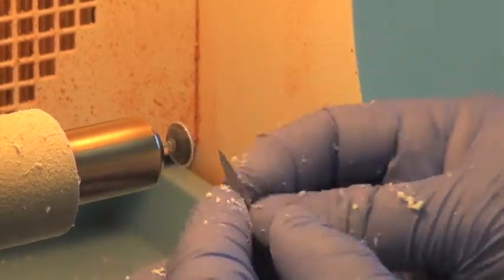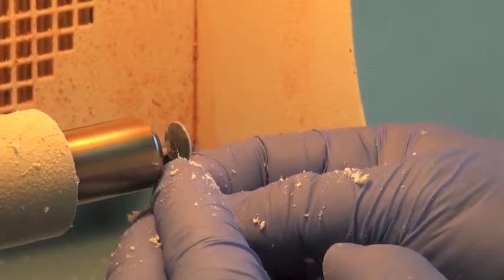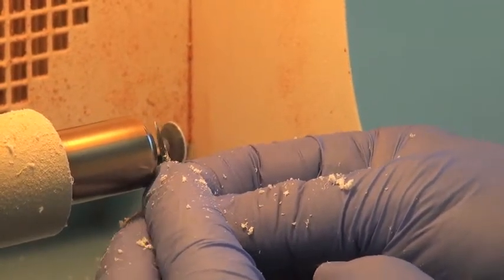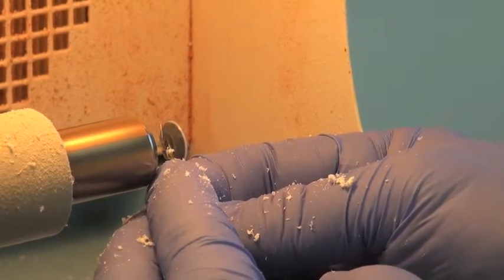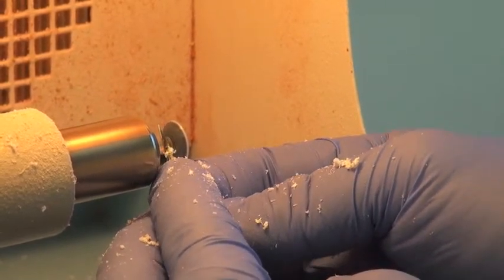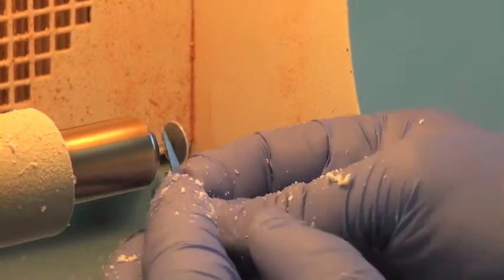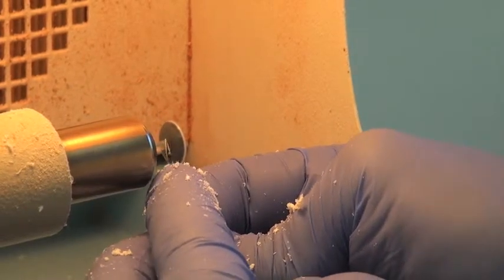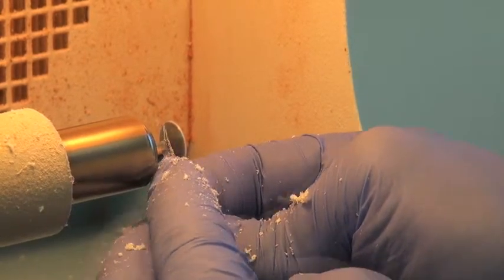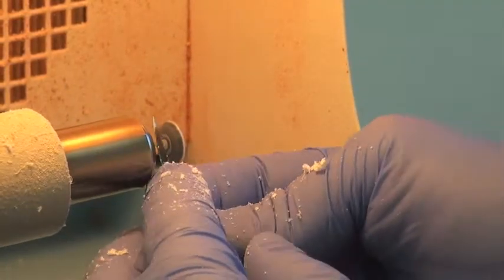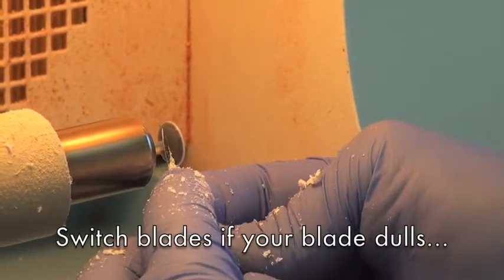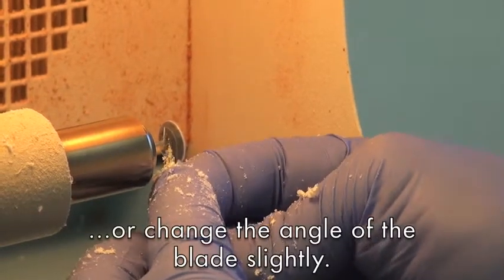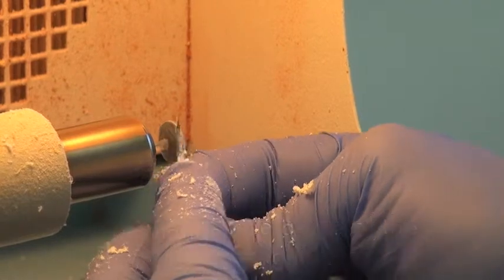I'm going to begin to thin a little bit of the outer edge to maintain a curvature. And just take your time. Sometimes you may get a sharp or your blade may dull during this process and you may need to grab a new one, or sometimes it's as simple as just changing the angle of the blade slightly and then it begins to cut again.